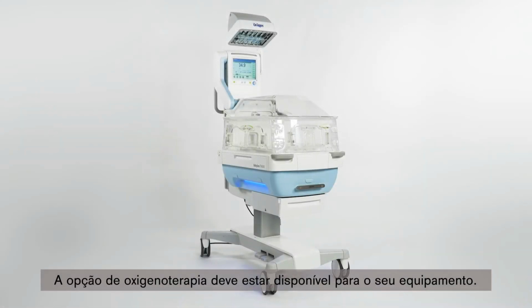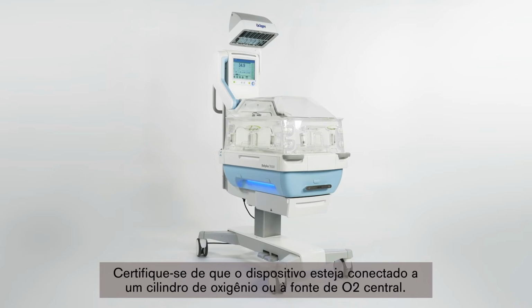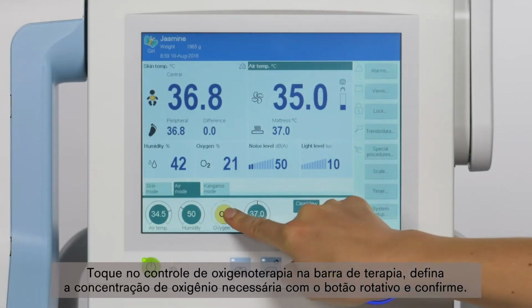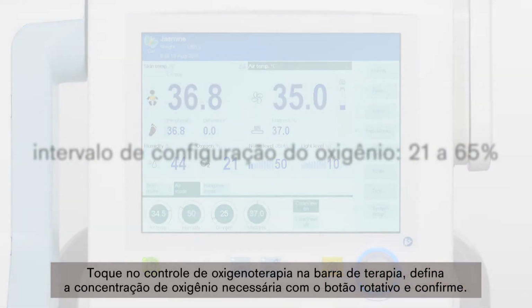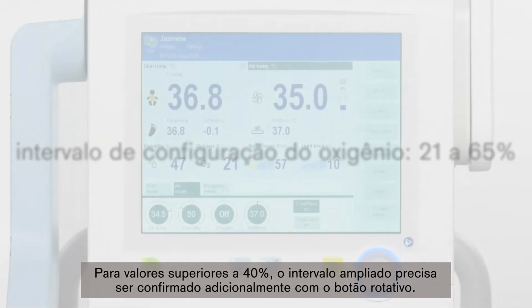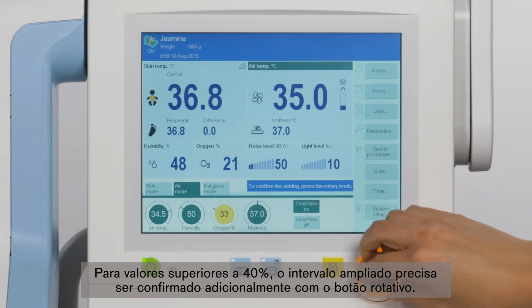The option Oxygen Regulation has to be available for your device. Make sure that the device is connected to an oxygen cylinder or to the central O2 supply. Begin by touching the oxygen therapy control in the therapy bar and set the required oxygen concentration using the rotary knob and confirm. Oxygen range is 21 to 65%. For values above 40%, the extended range has to be additionally confirmed with the rotary knob.